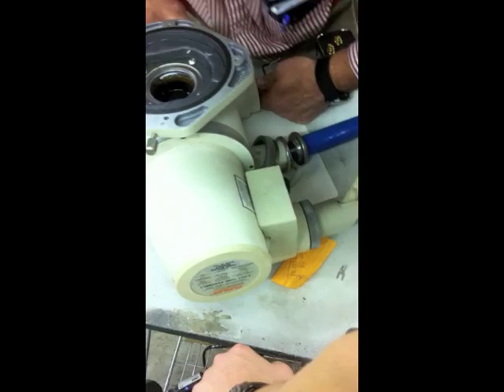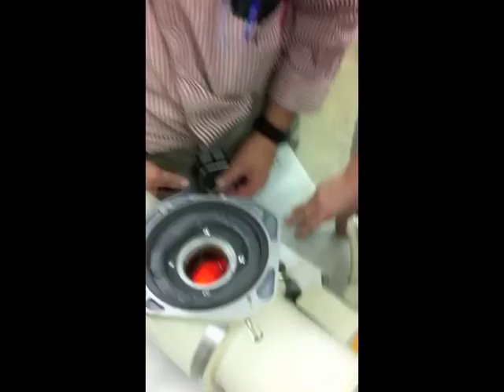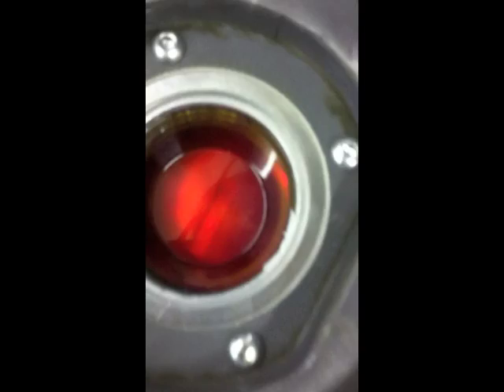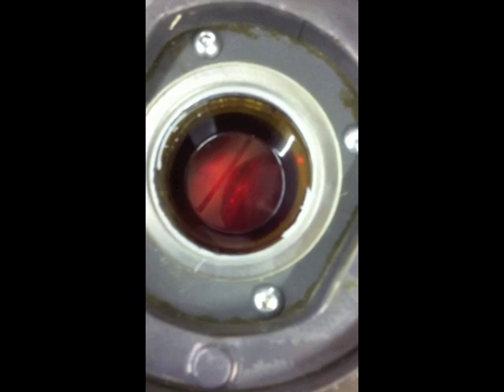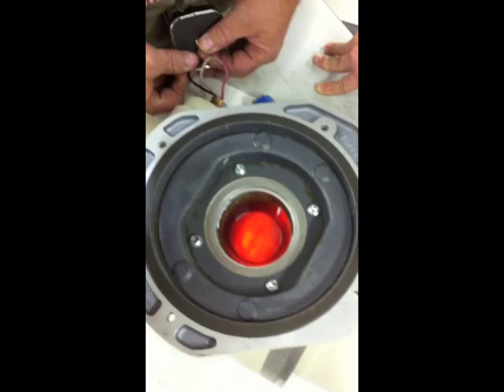You can get it up in there. There we go — it seats. Now look straight down. You're looking straight down at the anode. How many bright spots do you see on the anode? One little spot — one reflection. Now look at it. Still looks like one to me. Oh wait, I see it — I saw the second one. Yeah, it's two of them. That means you're going through both filaments. Here you're only going through one.